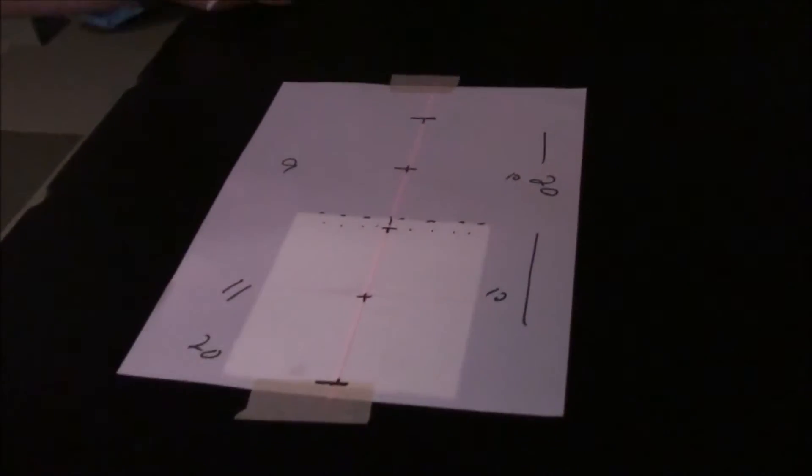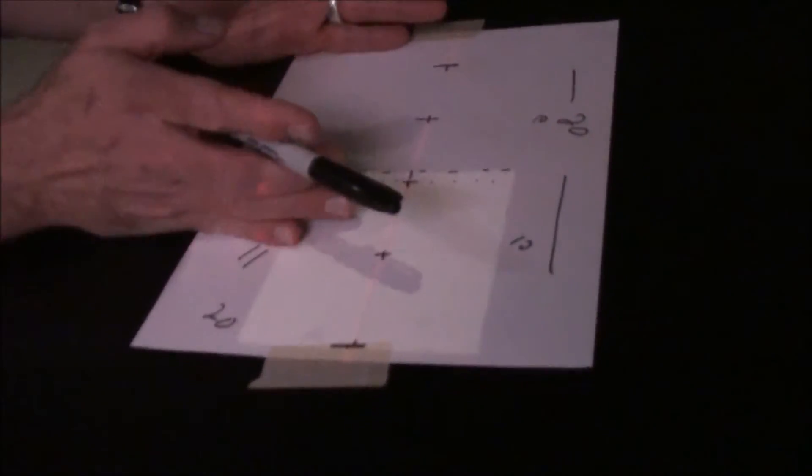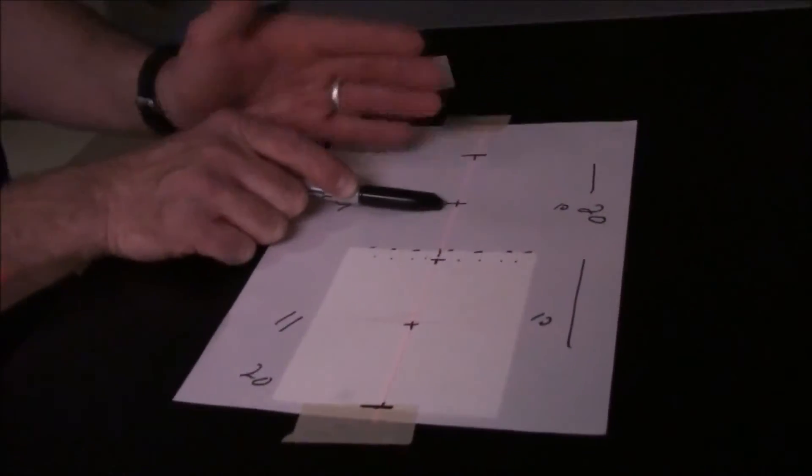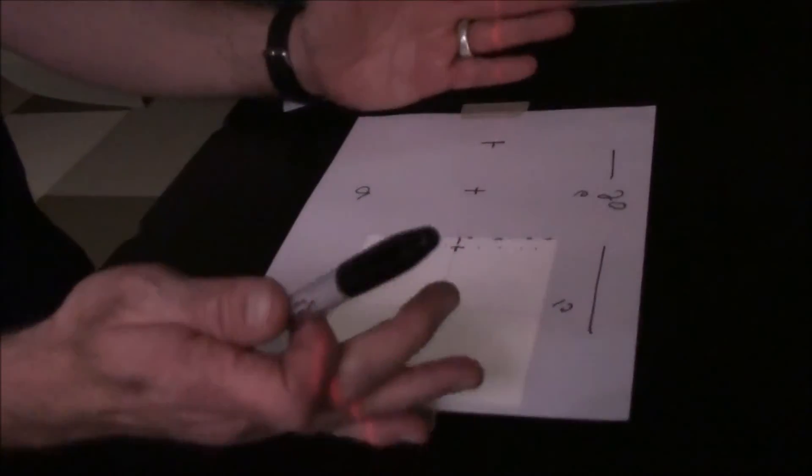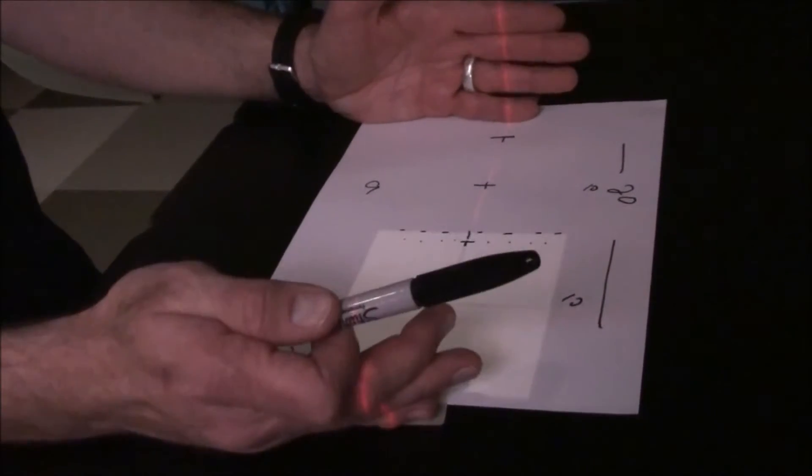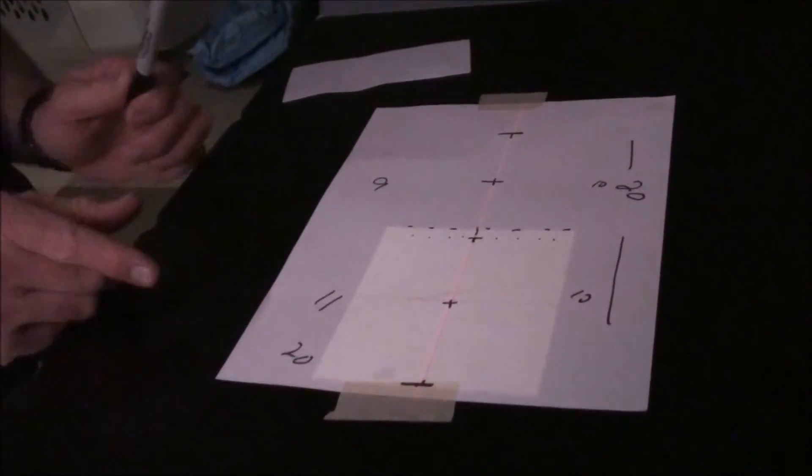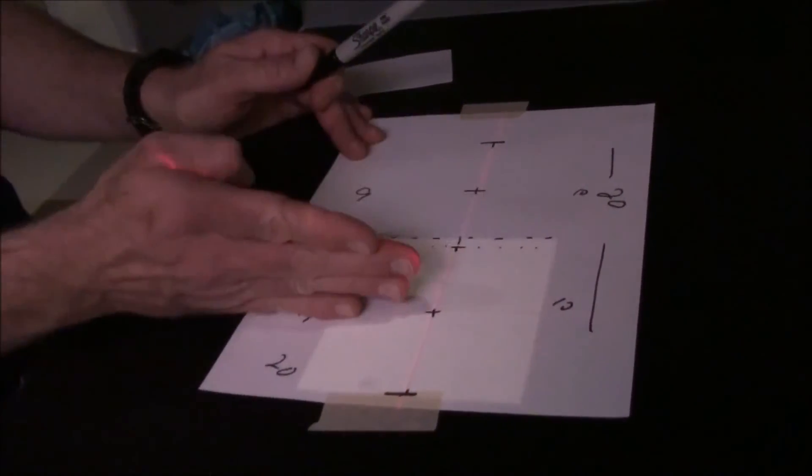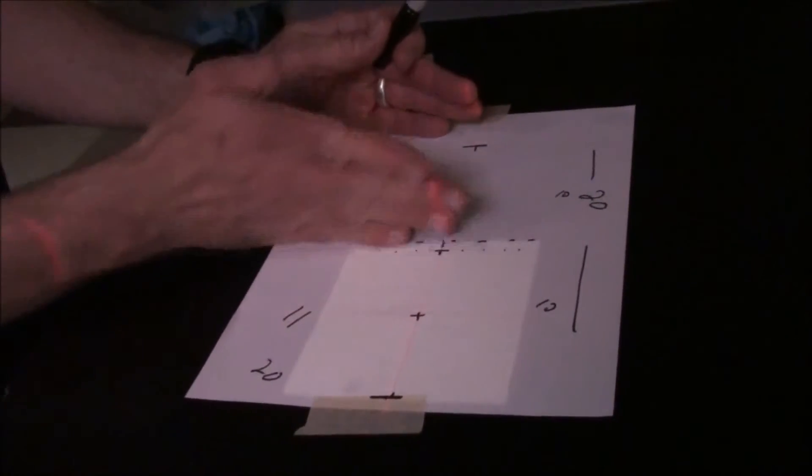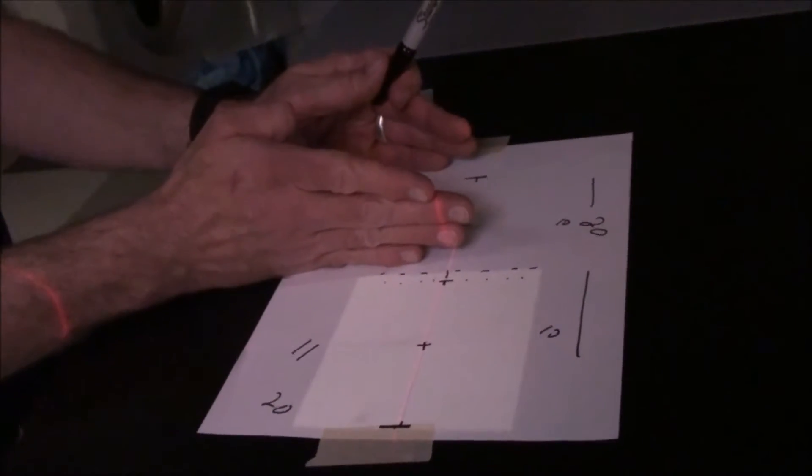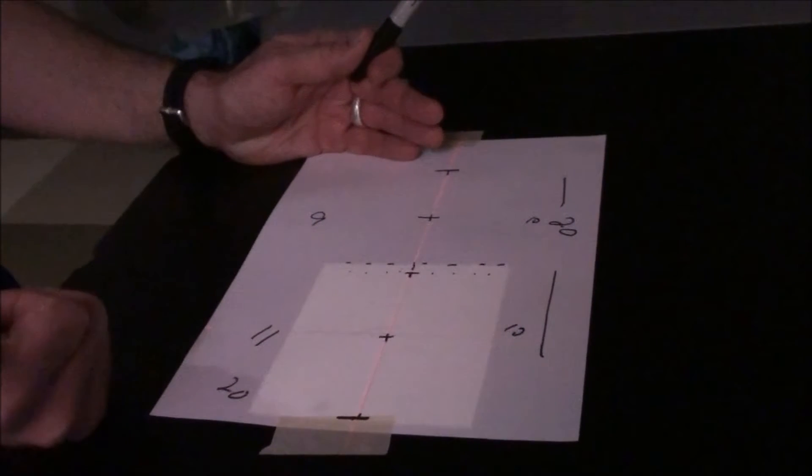You can do this as many times as you want. You can make this field size smaller again and this one bigger again as long as you maintain that hard superior and inferior edge. What you're essentially doing is moving half and half. You saw that we ended up with a half a centimeter's worth of volume change, and then we moved the table a half a centimeter.